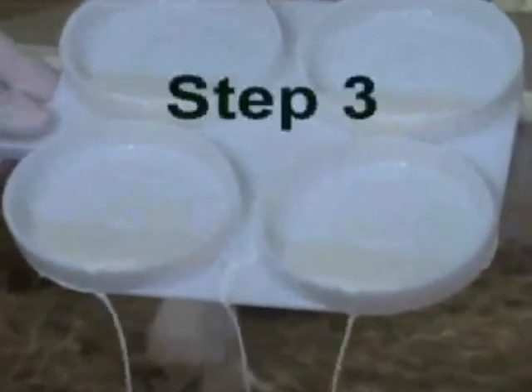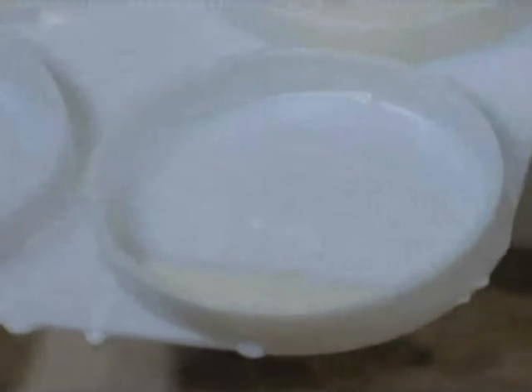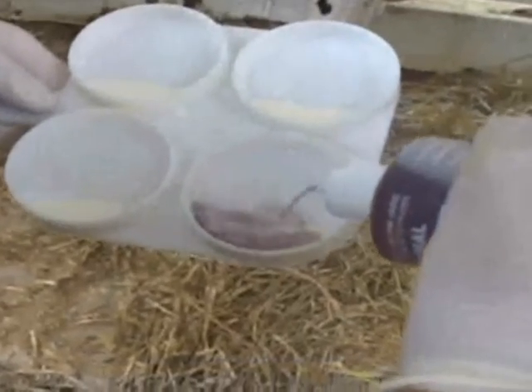For the third step, tilt the paddle to remove excess milk. Keep just enough milk so that it reaches the outer circle in the cup. Tilt the paddle back so that the milk level reaches halfway between the inner and outer circles.